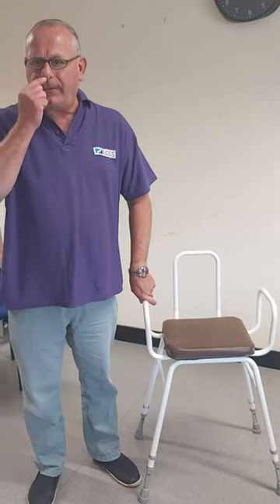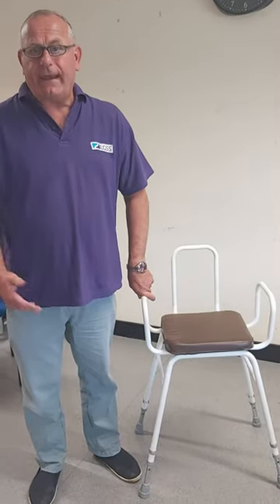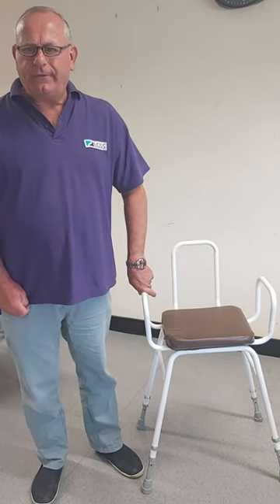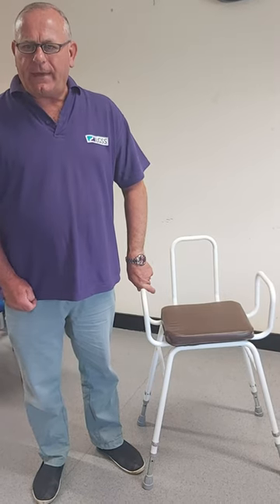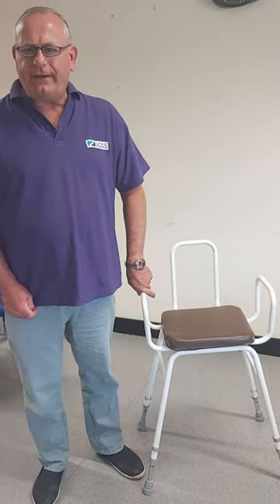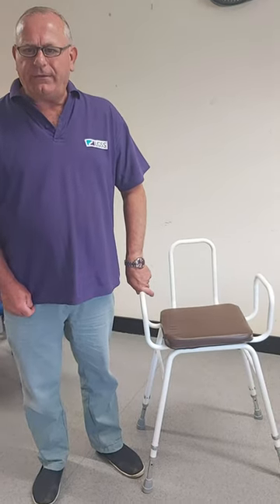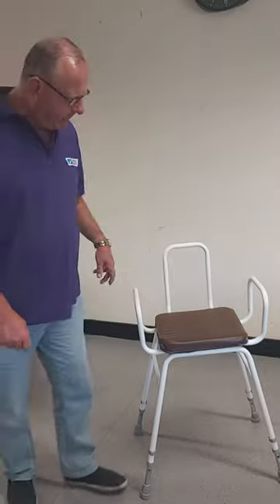This is for people who are unable to stand or sit in a conventional chair to carry out their essential daily activities. It must not be used in a shower cubicle. Check that the user will still be able to reach the work surface or hand basin for whatever activity they are doing. The user will need to be in a good sitting balance position, which I'll demonstrate for you.